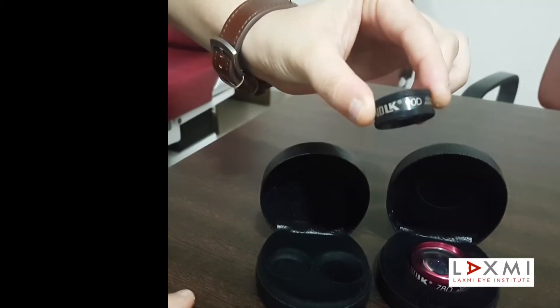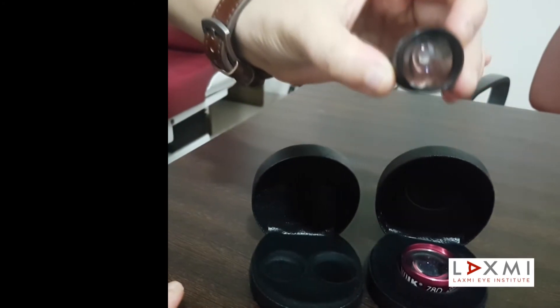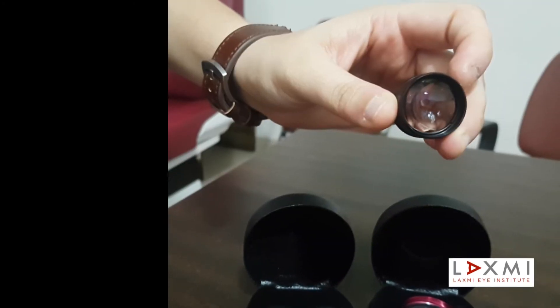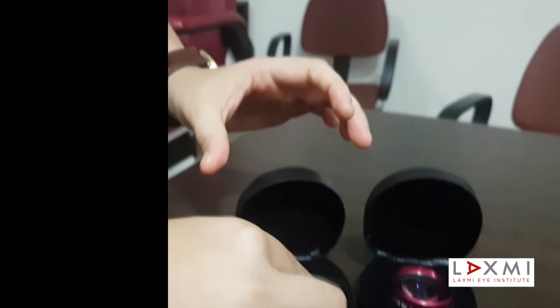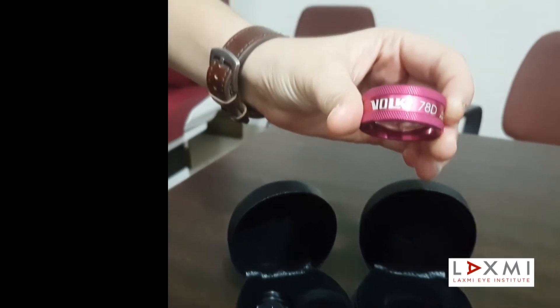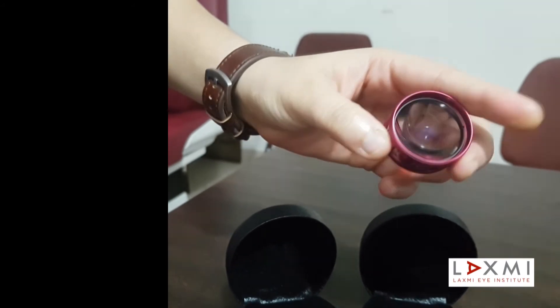The lenses used are convex, non-contact lenses — 90 diopter and 78 diopter — and they have a double aspheric design. Apart from this, a 60 diopter lens can also be used.